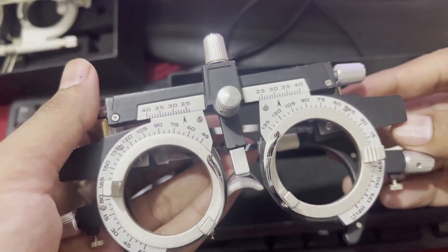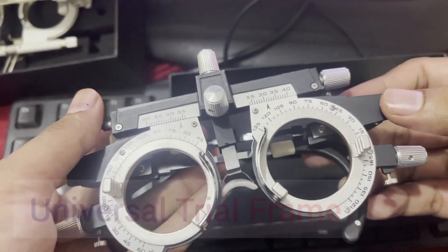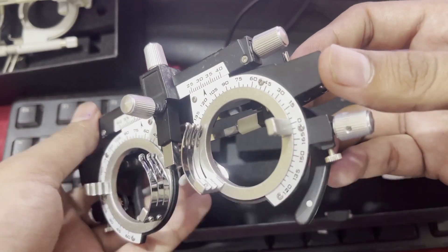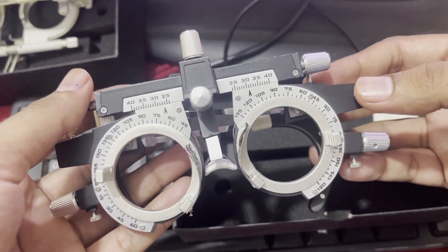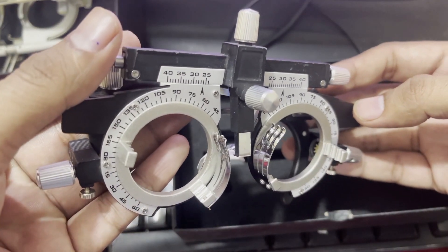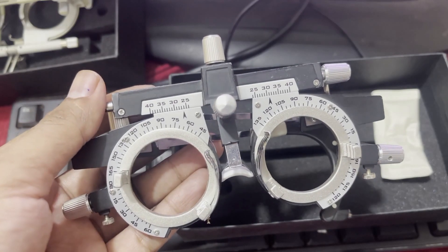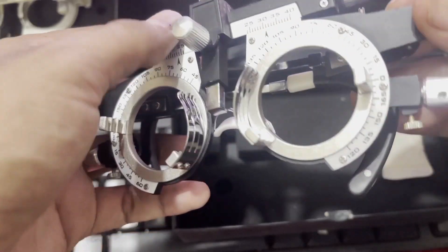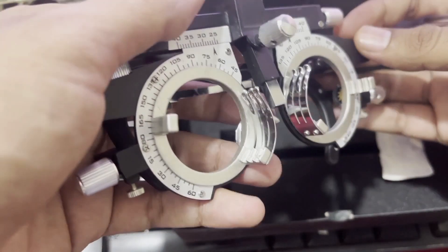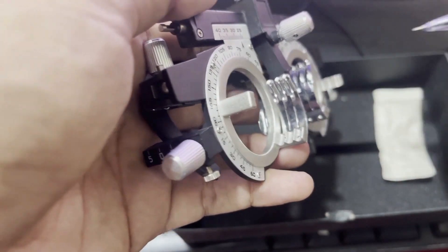This is a universal trial frame. We will discuss the different parts of this universal trial frame. First, we will discuss its different compartments — there are three different compartments.